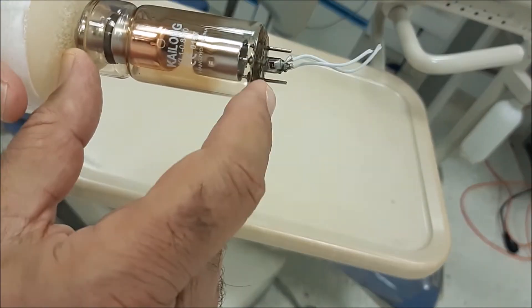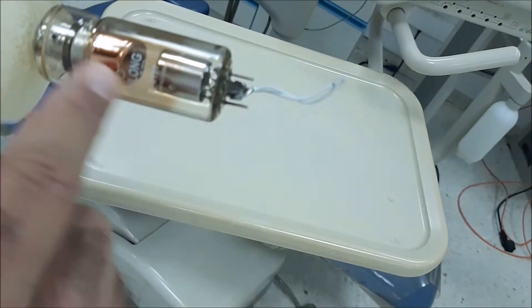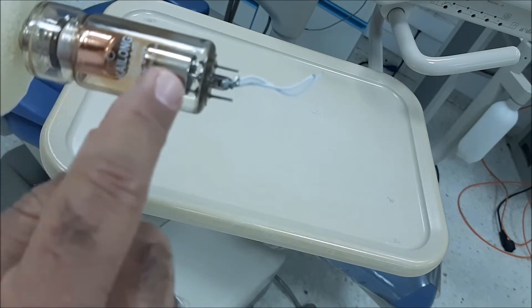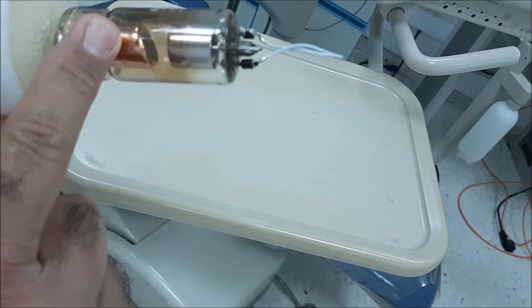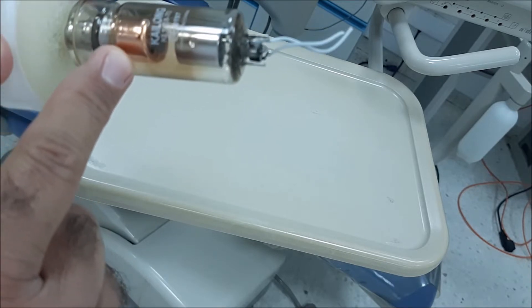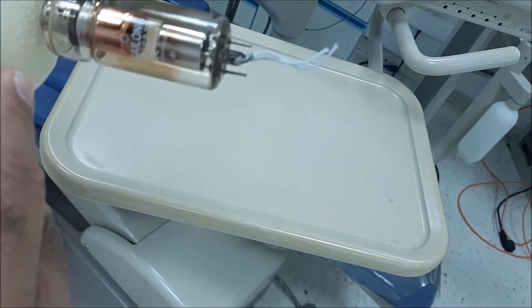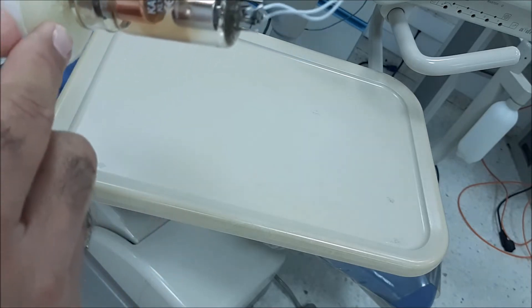Basically, this is a vacuum tube. It means that this space over here is completely void of air. There is no air whatsoever, and we will discuss this later on. But let's talk about the components.